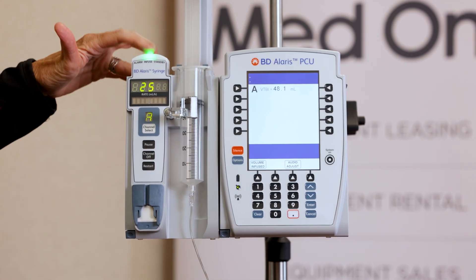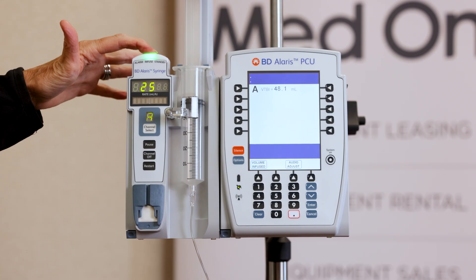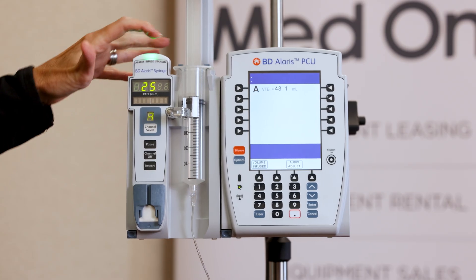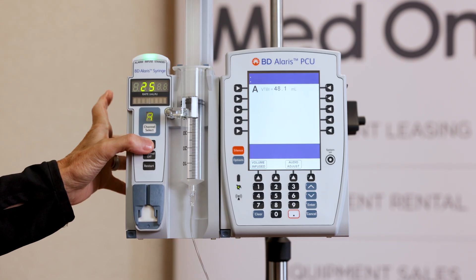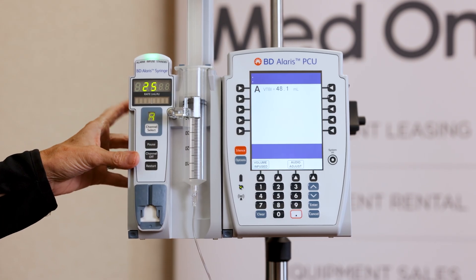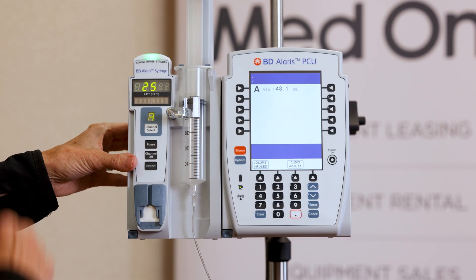The light up here is green — this is like a nurse-created lighthouse. Green is good. If it alarms, it's red, and standby is yellow, which is like a pause. If you press the pause button, the pause lasts two minutes. If you don't start it back, it will alarm, so you would just come back in and restart.